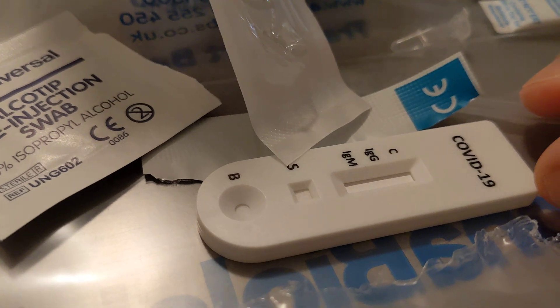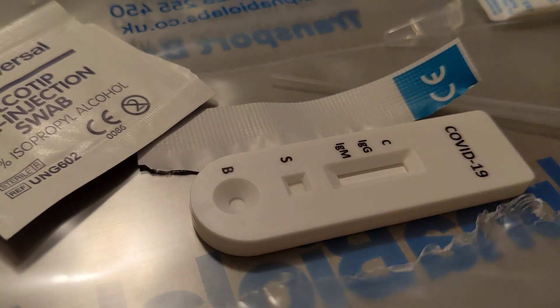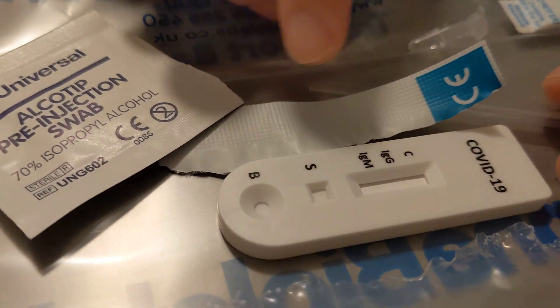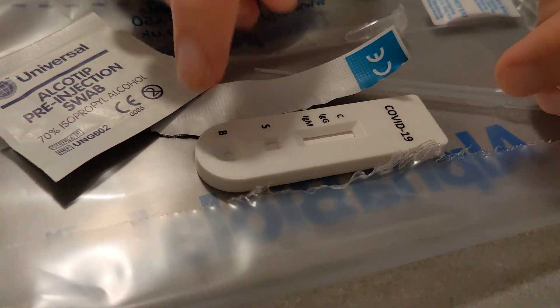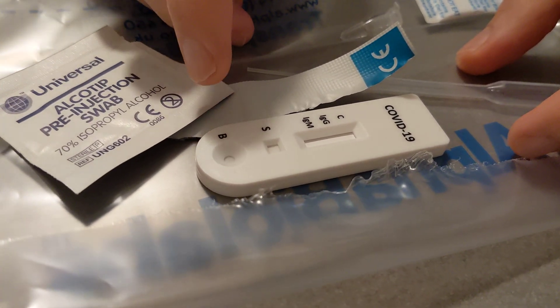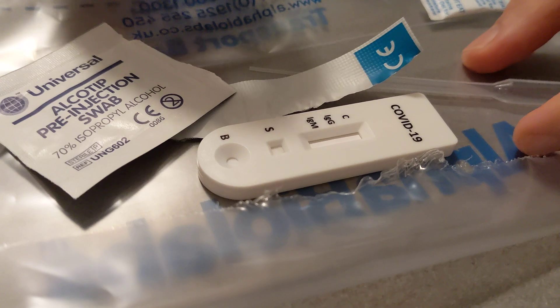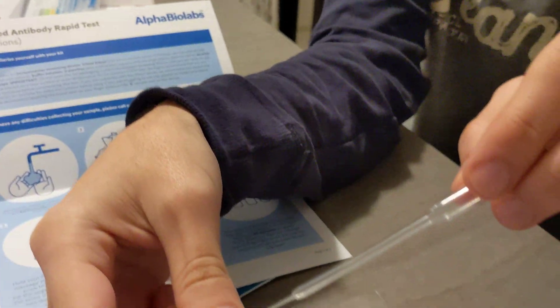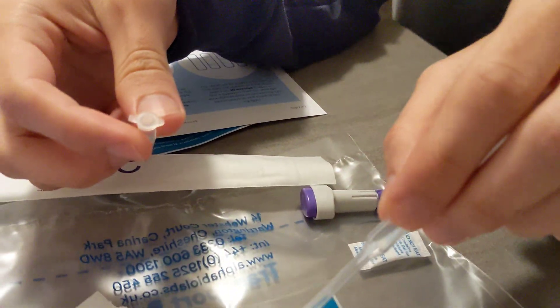So here — you can see from here. The B slot is going to be where you put the B solution. The B solution is something that reacts with your blood and is going to provide you with the answer. So this is the B solution; included in the package, you're going to use this to take the B solution and put it there.